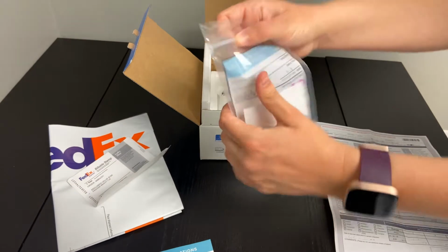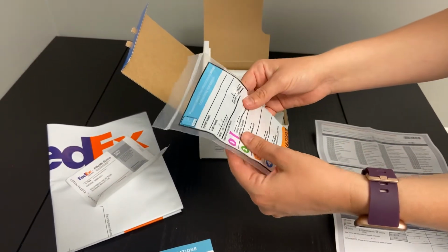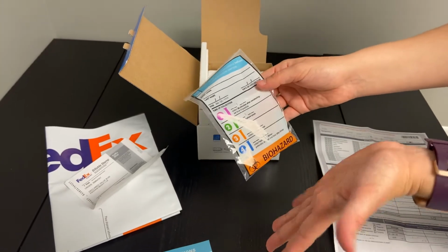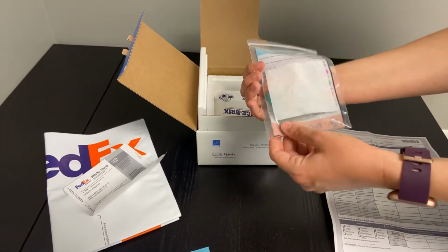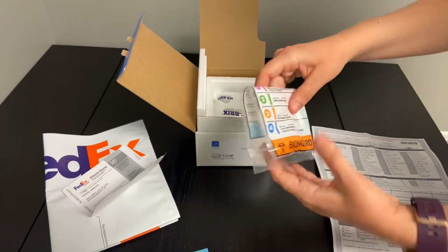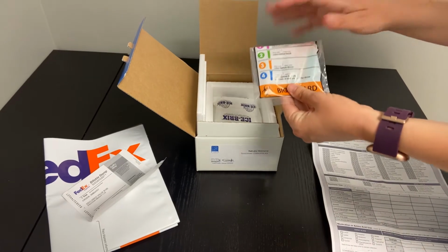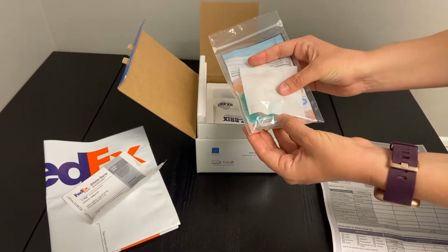If we don't get a full sample sent to the lab, they do request that patients will have to recollect. So it's really important that you're doing such a fabulous job by making sure you're following all these instructions. But number 1 is to make sure that these caps are nice and sealed tight. You'll put this into the freezer at least overnight in order to allow for these tubes to freeze completely.